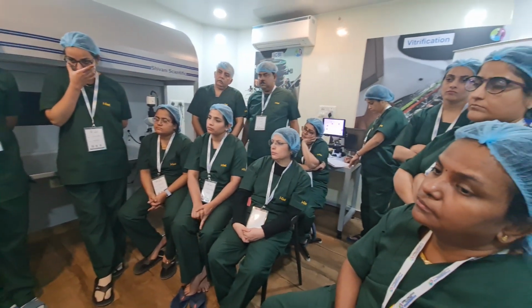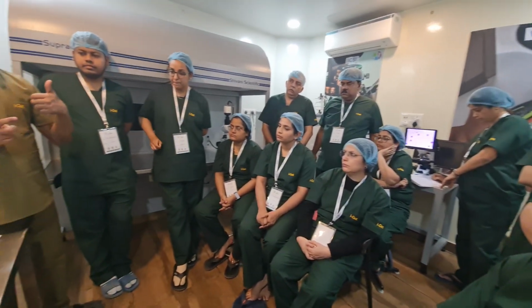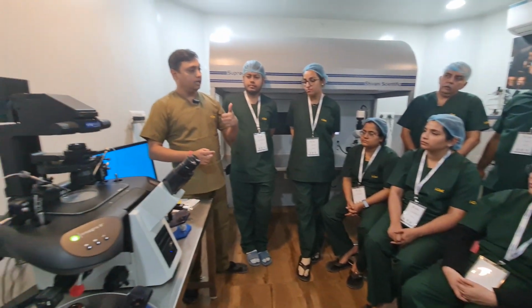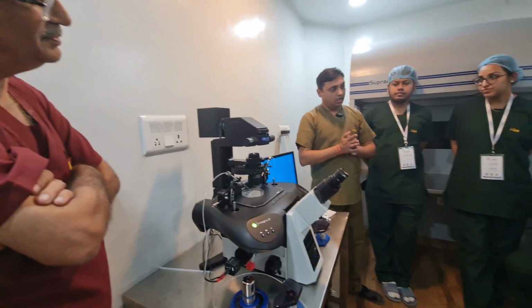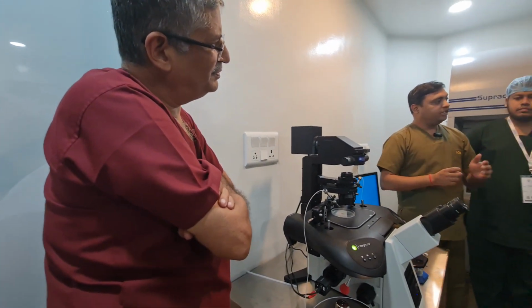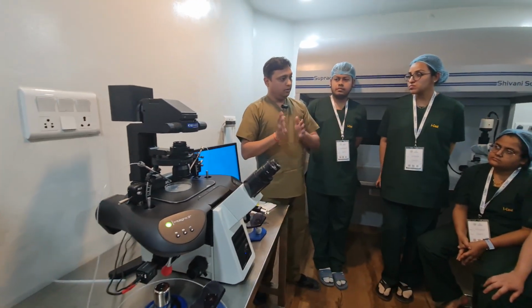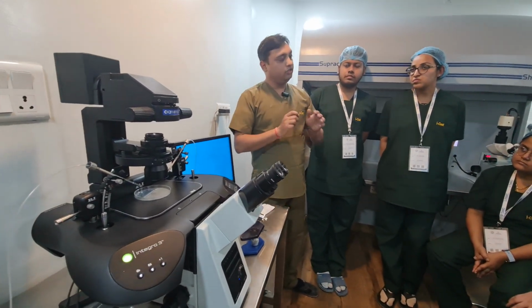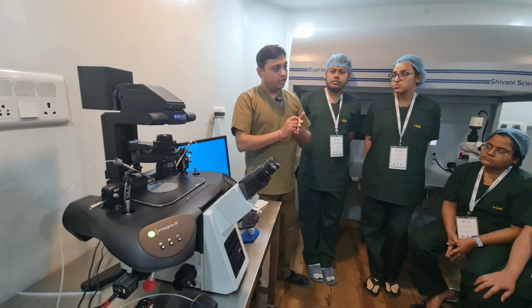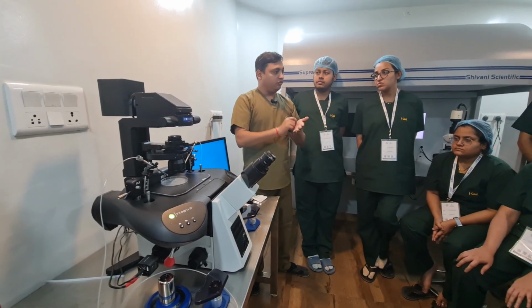If you talk about this micromanipulator, earlier RI had made Nikon Integra, then Integra TI, then Integra 3. When they were planning to make this Integra 3 in Europe, they sent a survey to every center, because we have data of each and every center. We asked what you need when you are using ICSI. So they got a number of inputs.